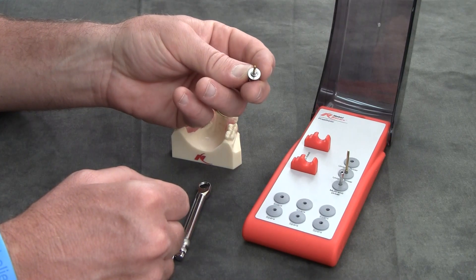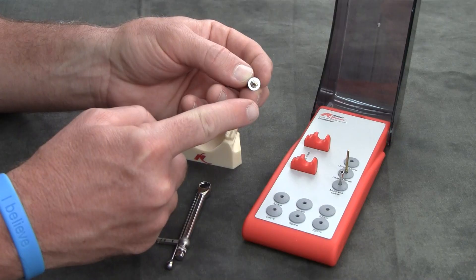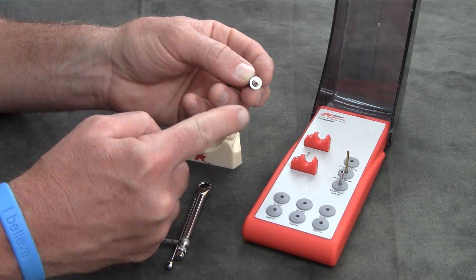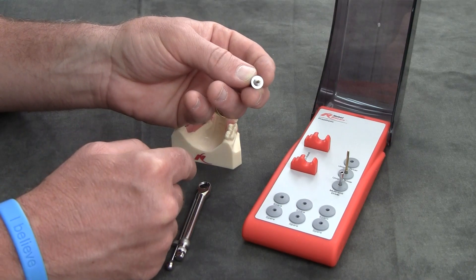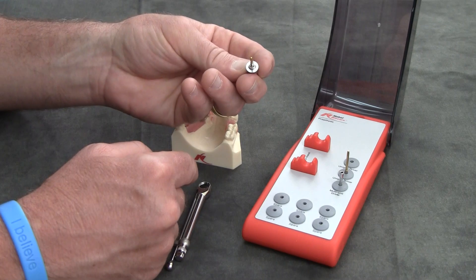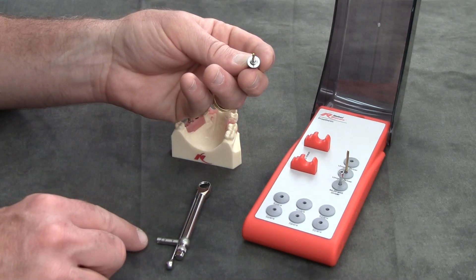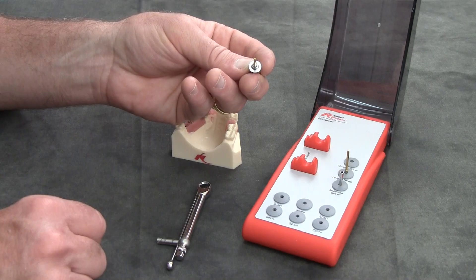Any other system that has these latch head inserts, either for an 050 hex or anything else can be purchased and used in the Nobel BioCare torque wrench, which makes it a very versatile tool for your practice.